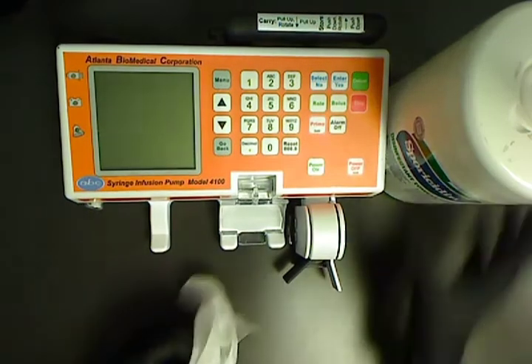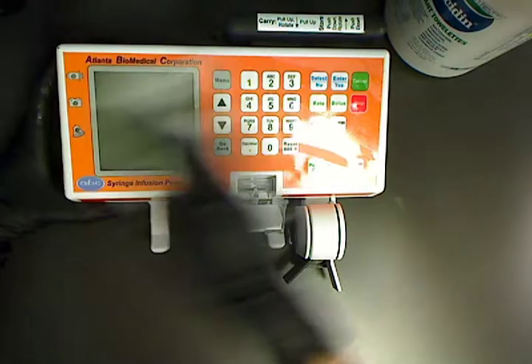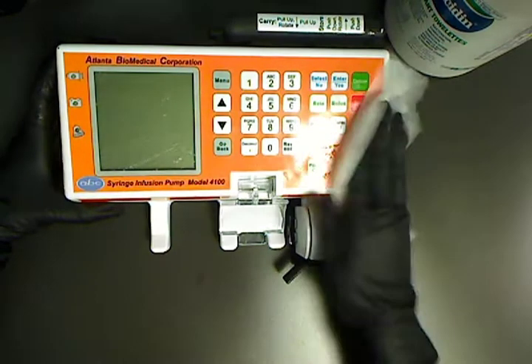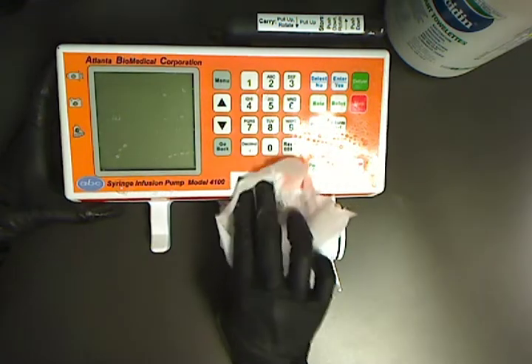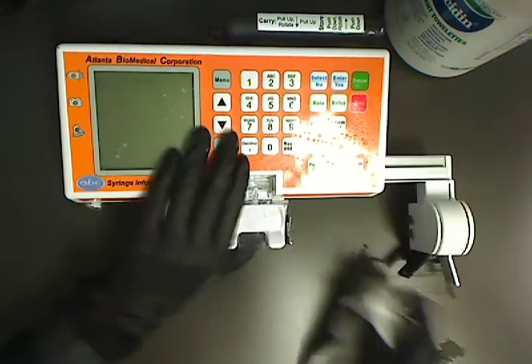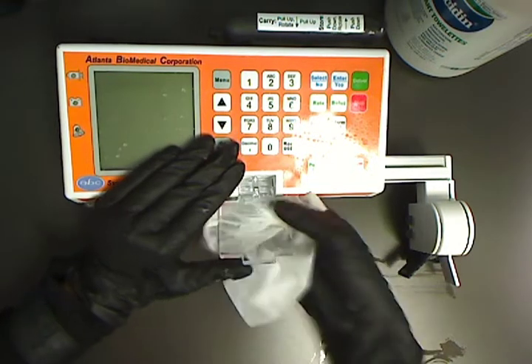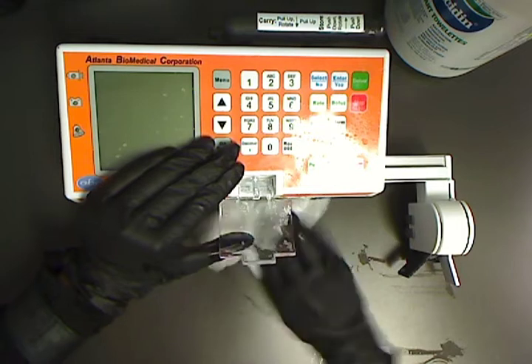The main surfaces to be cleaned are the keypad overlay area along with the clear syringe clamp. Make sure you get on the underside of the syringe clamp and then clean the saddle portion where the syringe would sit.